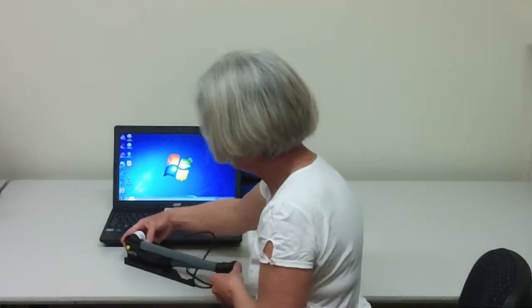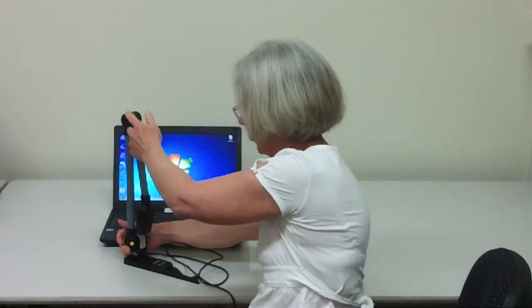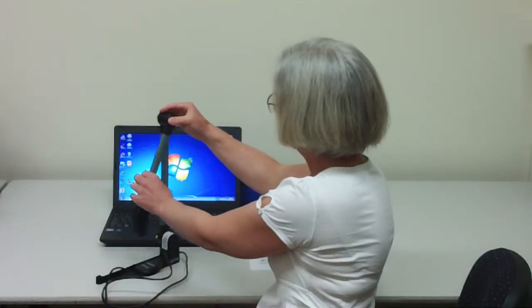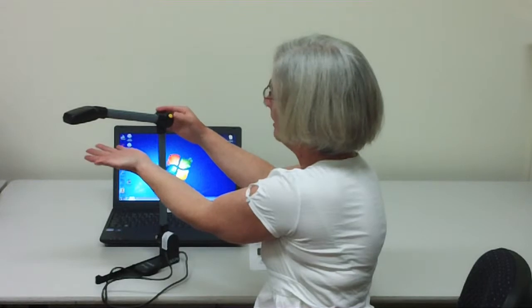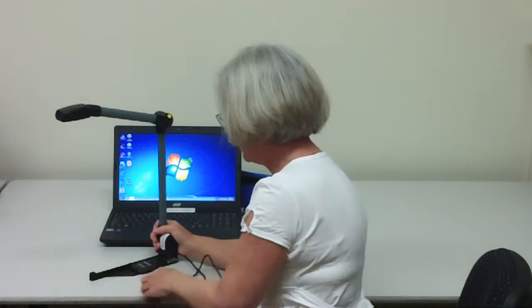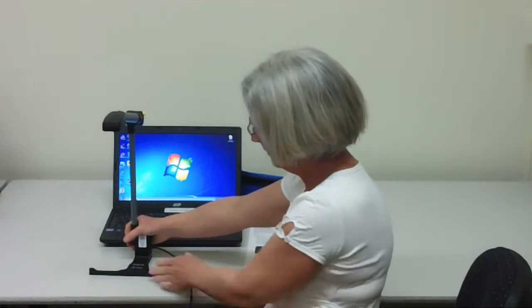There are buttons to press. There's a yellow button at the top as well. While you're holding that you can move the arm. Be careful because when you press the button it becomes very loose and you don't want it to break. There is another thing to do at the bottom — you need to unfold the base area and that becomes the paper guide for later.